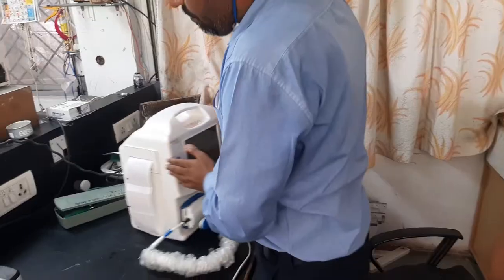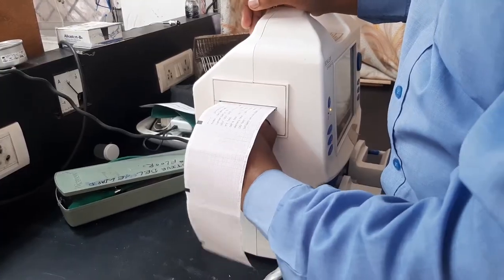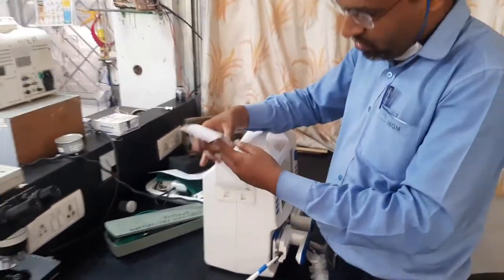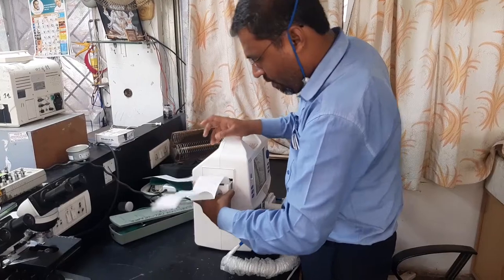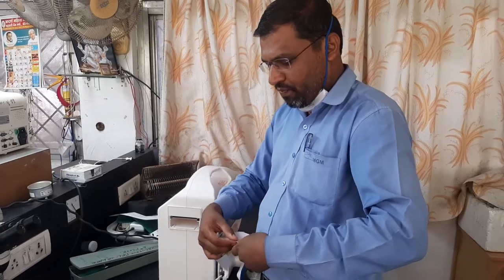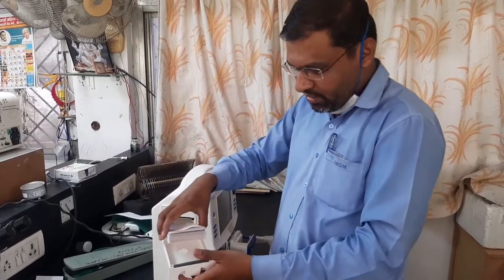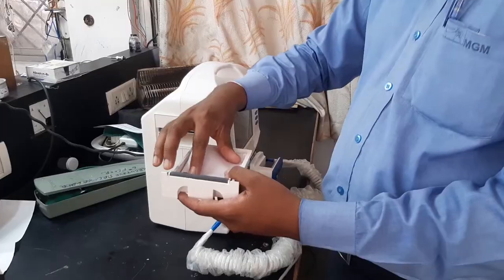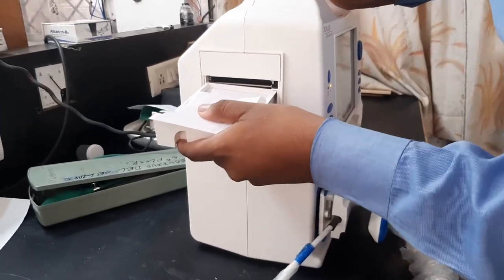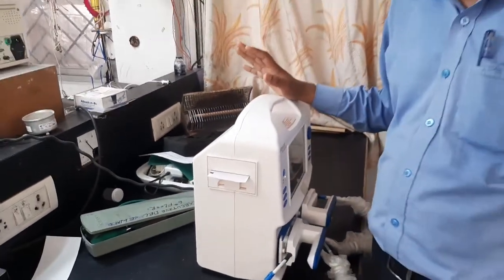Next, how to install printer paper. Many doctors, nurses, and technicians make a mistake here — they don't know how to put the paper in, and if paper is inserted wrongly the machine will not print. To remove existing paper, just pull it out. To insert new paper, place it like this with the small end at the outside, insert it properly, and just push it in. This is the printing paper correctly installed.